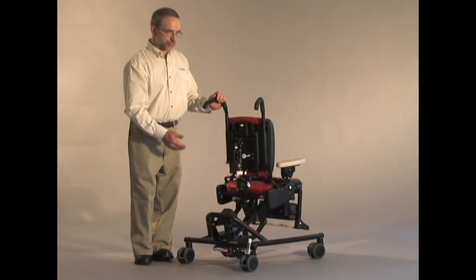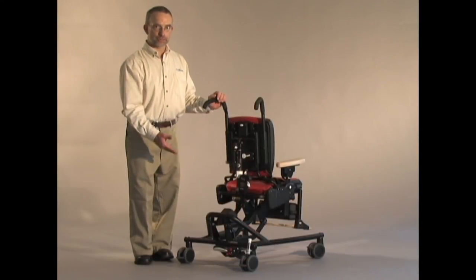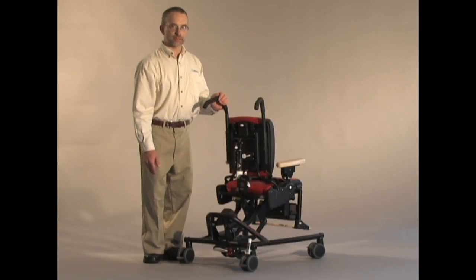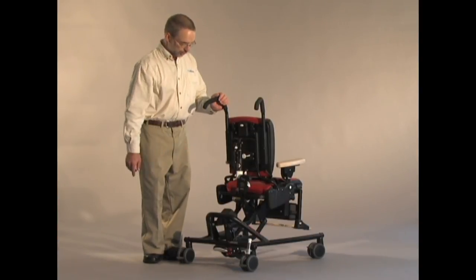For safety reasons, we've decided that we don't want to offer the dynamic spring feature below the seat. The reason for that is that it opens up too many pinch points that may occur while dynamically bouncing with a high-low base option.